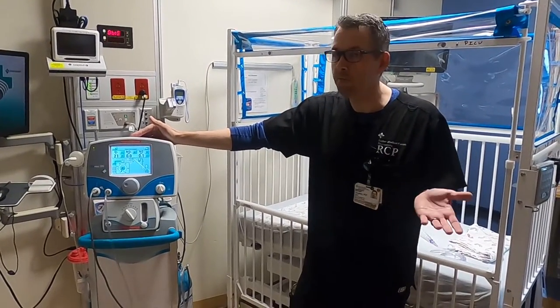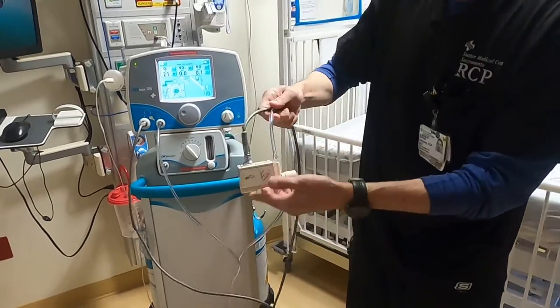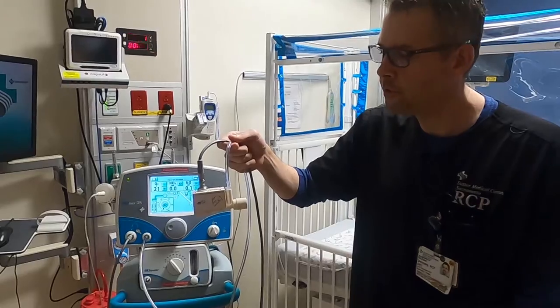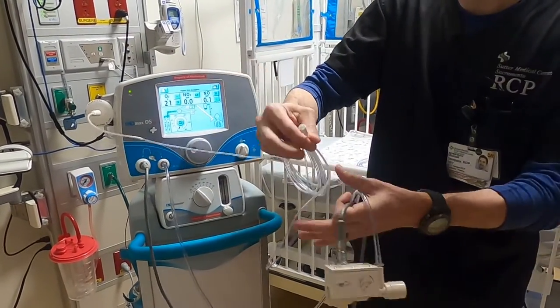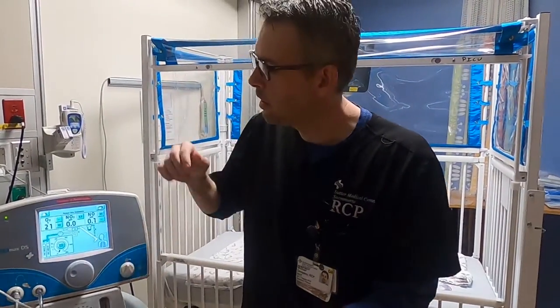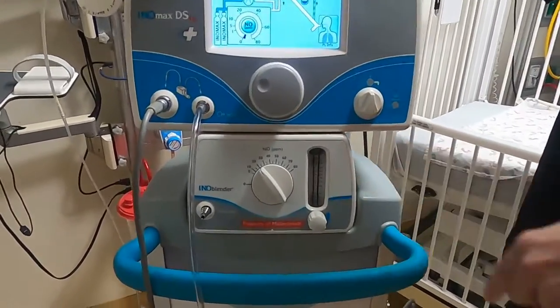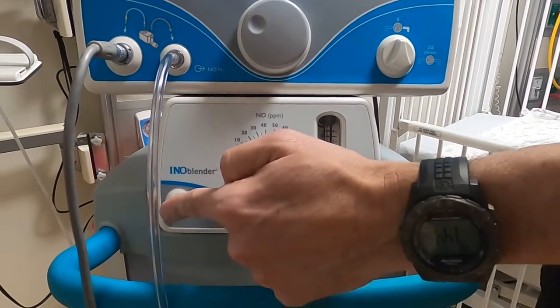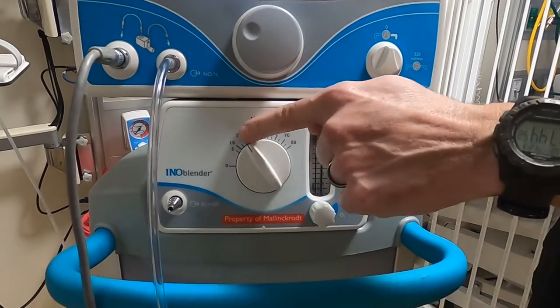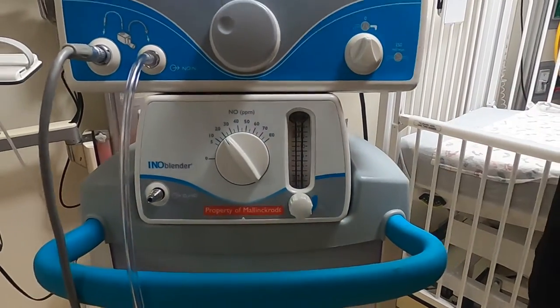First, we're going to talk about the components of the actual device. The most important piece is our injector — this is where all the nitric is actually going to be coming through to the patient. We also need a sample line connected to the patient circuit, which gives us feedback on how much nitric we're delivering, what our NO2 level is, and what our FiO2 is. The other component is our blender system, which allows us to deliver nitric oxide if you're having to bag the patient. You set your parts per million here, flow 8 to 12 liters per minute depending on your patient population, and bag away.